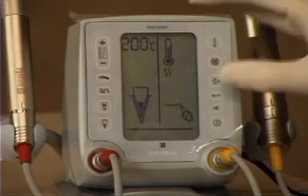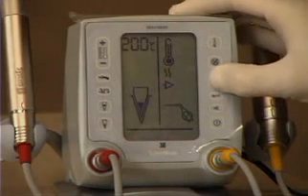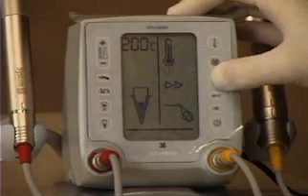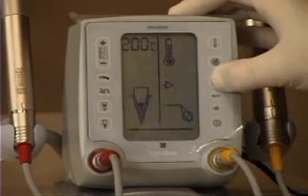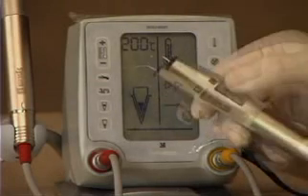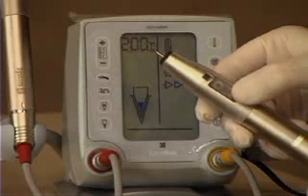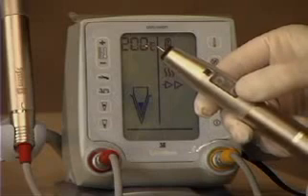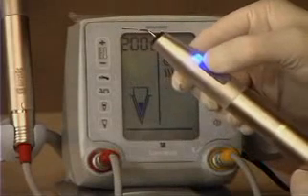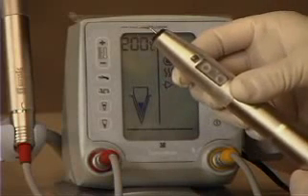There are several adjustments to speed. Pushing the right arrow gives one arrow first; push it again and you get two arrows; push it again and it goes back to one — so two speeds are available on the menu-driven display. The other speed adjustment is on the toggle switch. The toggle pushed forward gives a blue light — the slower range — and pushed back gives a green light for faster. Combined with the one- or two-arrow setting, this gives a total of four speeds.